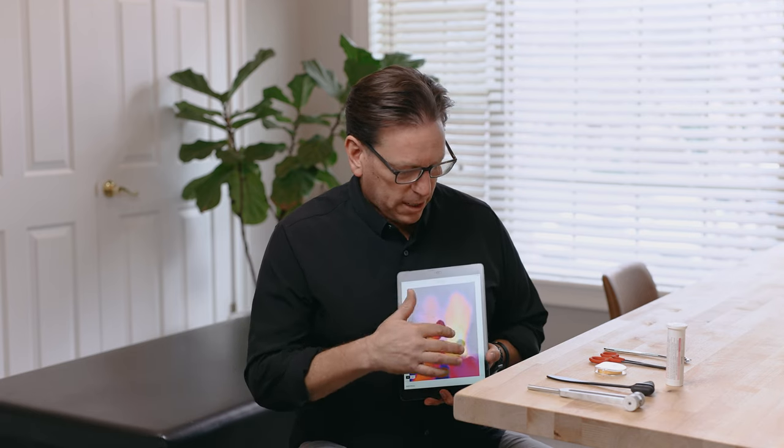This is what it looks like. We use a very high-end specific thermographic camera to take a visual picture of your feet or hands depending on the area you're suffering with. This allows us to see temperature, which typically relates to blood supply.